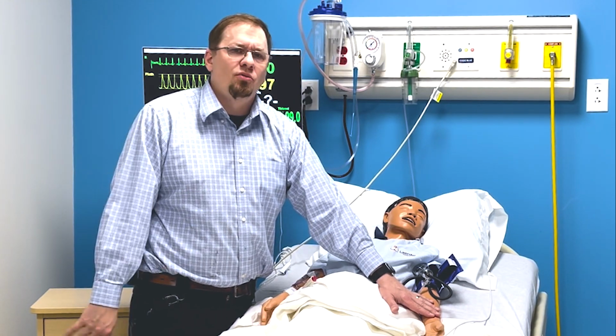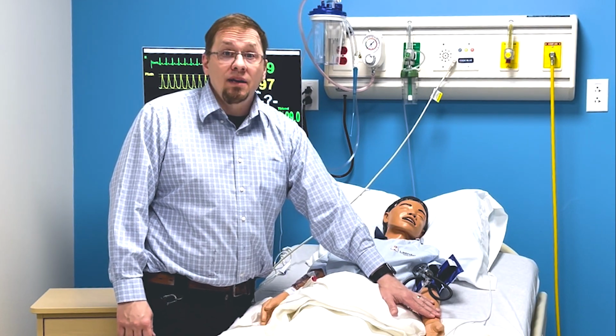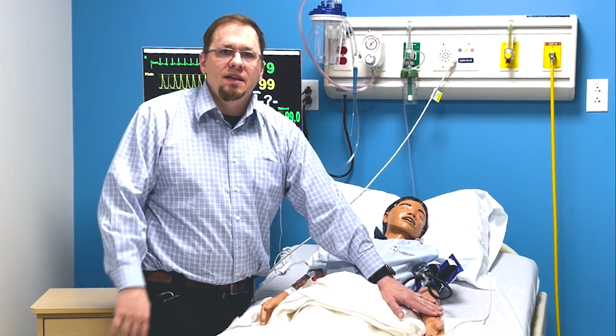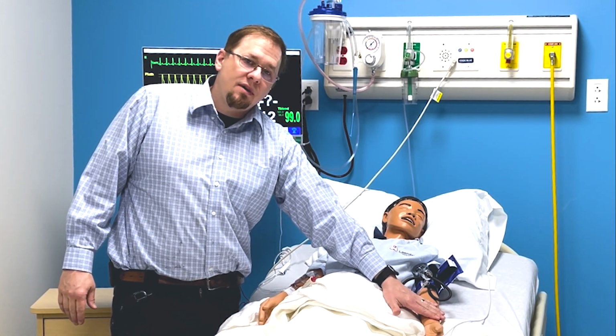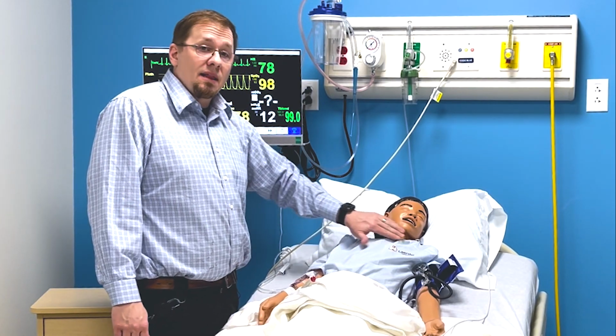Make sure it's not a slow Brady or things like that. The other thing I like to do is get kind of buy-in. "I don't feel a pulse, do you?" It gets another clinician in here, one of your team, to feel and kind of have that double check. Then if you don't feel a pulse, you're going to do some things. On this mannequin, like I said, we have a radial, we have a brachial, and he has carotids bilaterally.